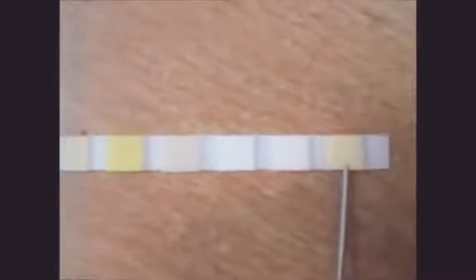Next to it tells you about the presence of protein in your urine. And this one tells you about the glucose in the urine. This one tells about the ketone bodies in your urine. And next to it tells you about urobilinogen in the urine. And it tells about the bilirubin in the urine. And the next one tells you about two things. It gives you the presence of blood in the urine or the hemoglobin. And each color indicates the concentration of that particular value that we will show you later in the video.